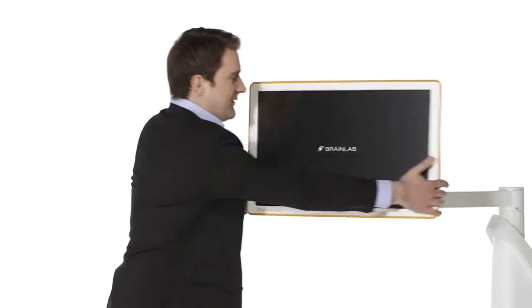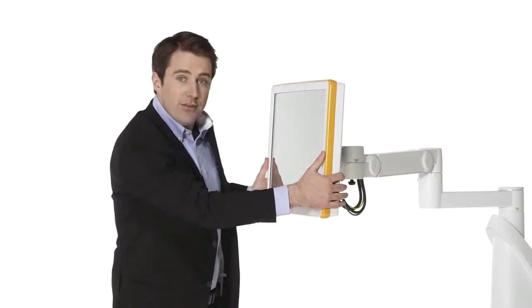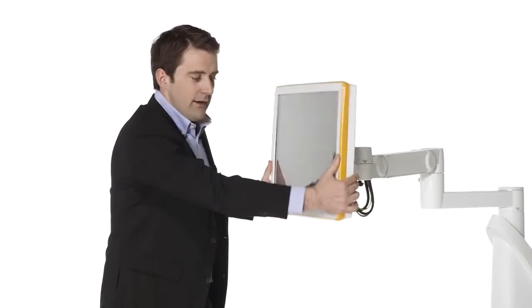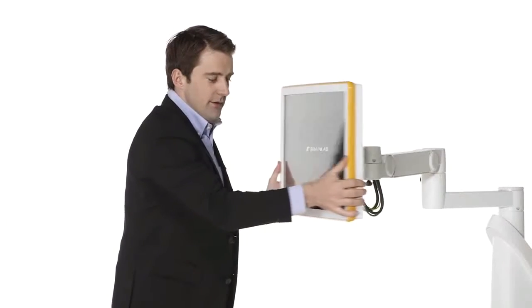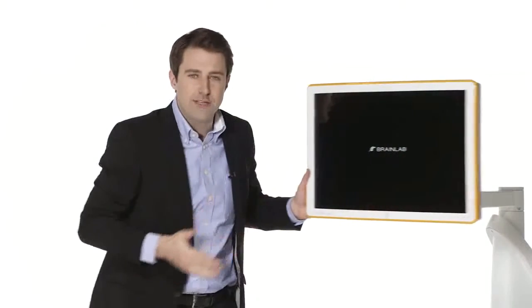The Curve display is flexible both in tilt and rotation, creating an optimal viewing angle.